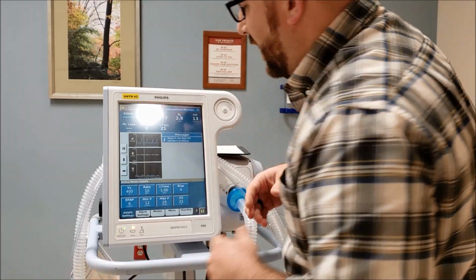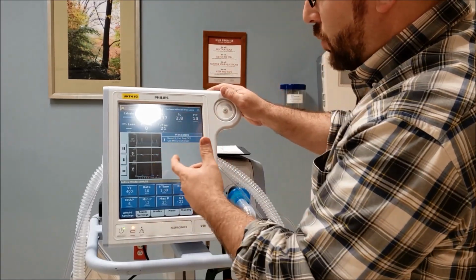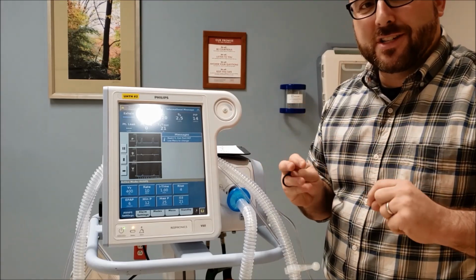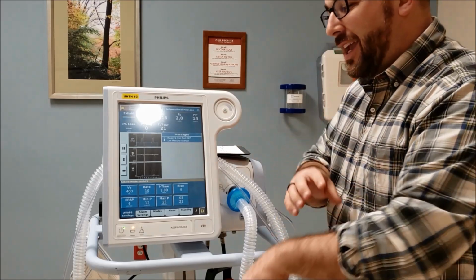So we're going to go and do that. And let's say we're using Phillips masks. We're going to use mask number 1. So you always want to do this because that's how it's going to calculate leak. You probably remember on the old Visions we used to calculate leak and have a patient leak and a total leak and all that kind of stuff.